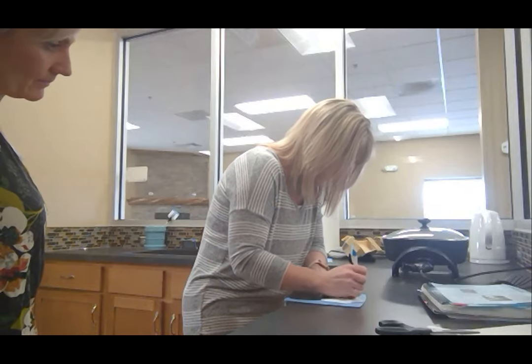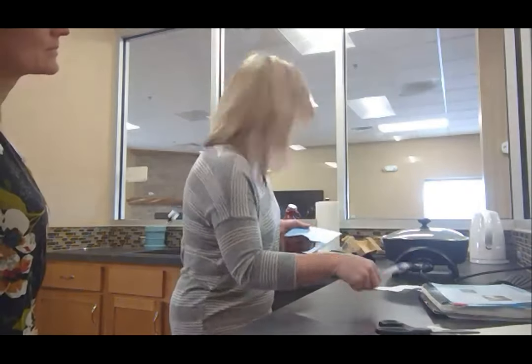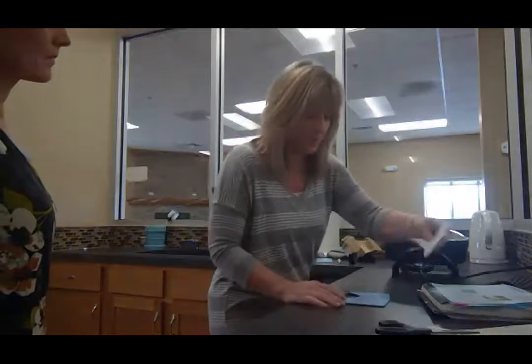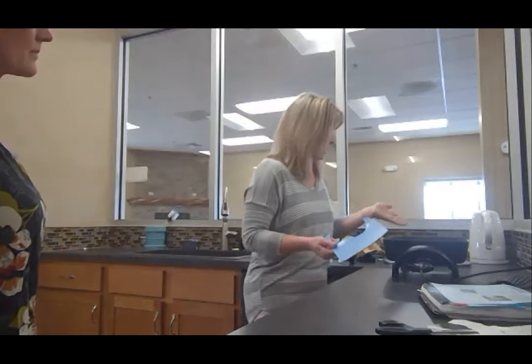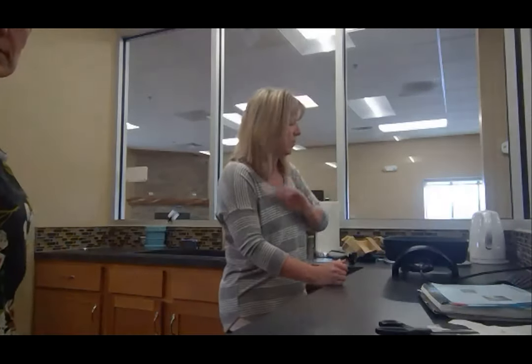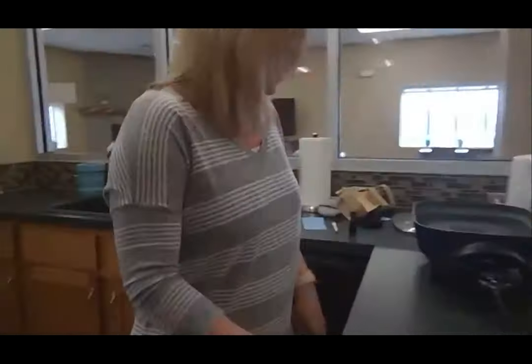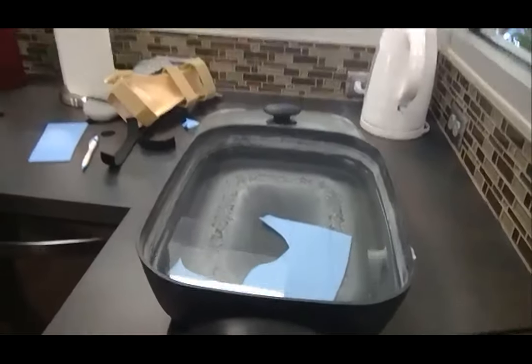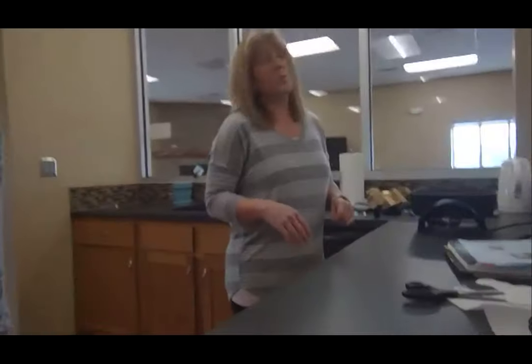This splint would be for someone with arthritis in their hand who has a lot of thumb pain — you put them in this type of splint so that joint can rest and the inflammation can calm down. I just have a regular electric skillet here to heat the splinting material. The difference between an electric skillet and an actual splint pan is you need to be careful because it gets very hot. In a proper splint pan you can control the actual temperature, but if you're fixing a splint you could heat water in an electric skillet and just adjust the thermoplastic as needed.